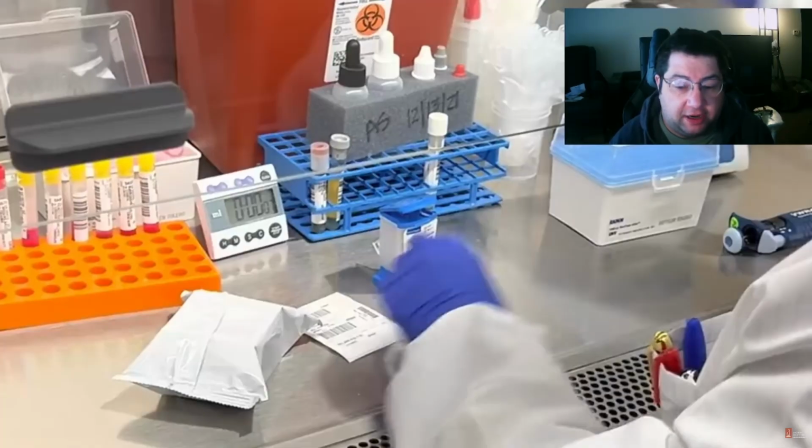When I first started out, these were in high demand, and we would run out of them all of the time. A lot of emergency room protocols at the time, I'm not sure if it's still the case, but at least where I worked at the time, this was in 2020, 2021, required a patient to have COVID testing prior to hospital admission. So that means every patient that came in that was going to be admitted needed a COVID-19 test. The COVID test takes about 50 minutes, roughly an hour, once you include processing time.